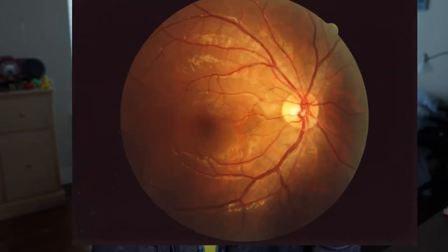One thing: when I say fundus image in this video, I'm talking about the fundus image of the eye — like one of these.